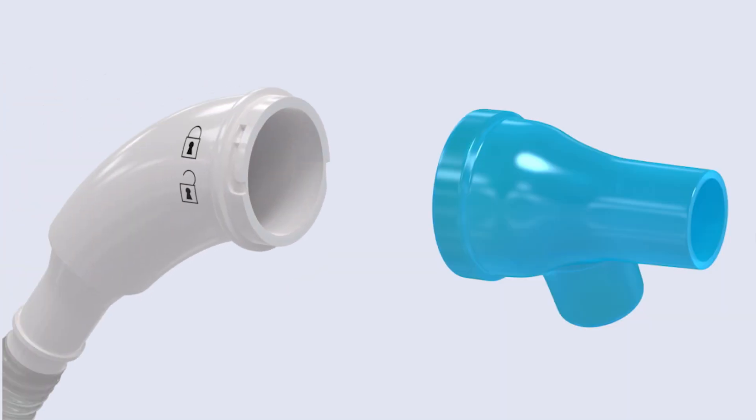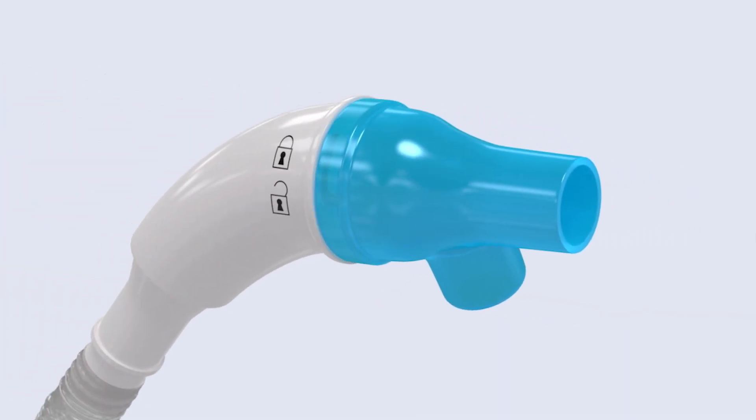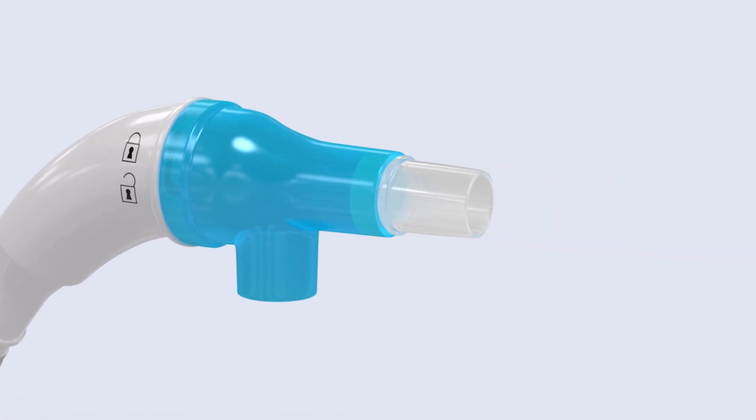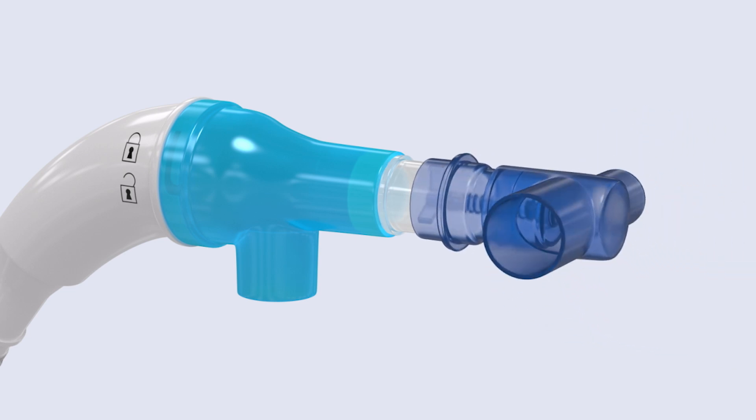Connect the handset at the other end of the breathing hose to the front of the blue ventilator adapter, twisting the parts until they lock into position. Now connect the inline ventilator adapter to the output port of the blue ventilator adapter and a spring valve T adapter into the other end.